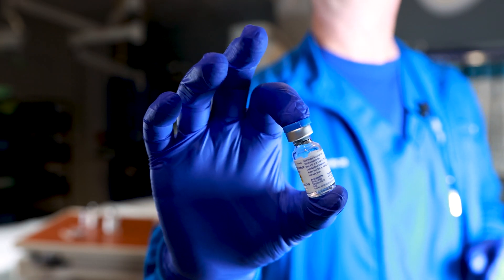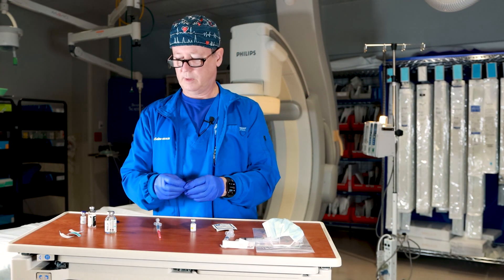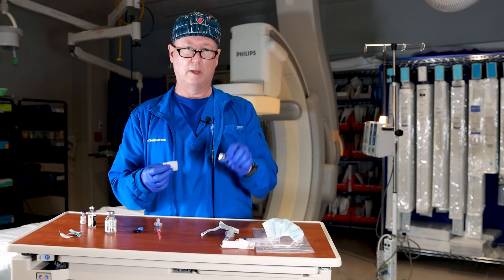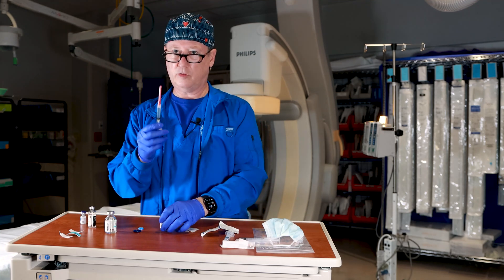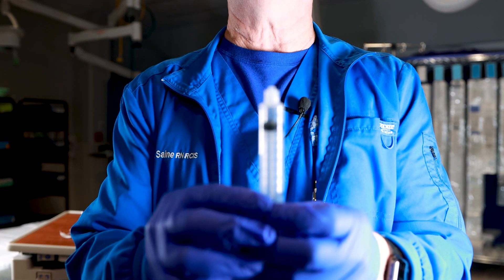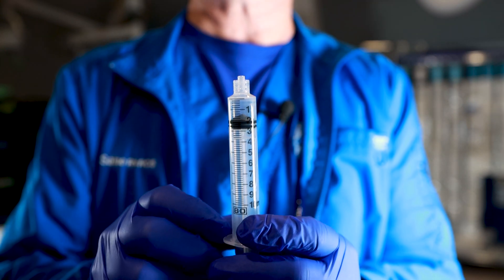So let's pretend this is Versed — Versed comes in two milligrams and two cc's. You pop the cap off. You have these plastic caps that go on, and then you would use an alcohol wipe, wipe off the medication. Now on your syringe you have a choice of syringes. What I don't want to use is a 10 cc syringe when I only have two cc's.